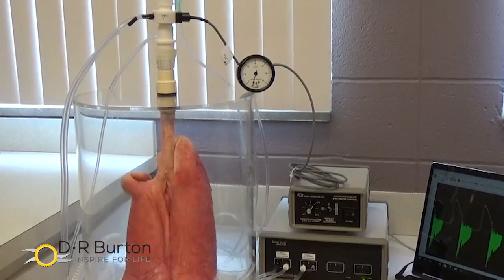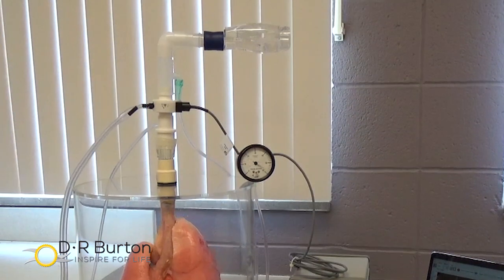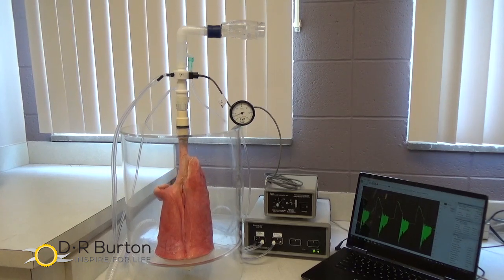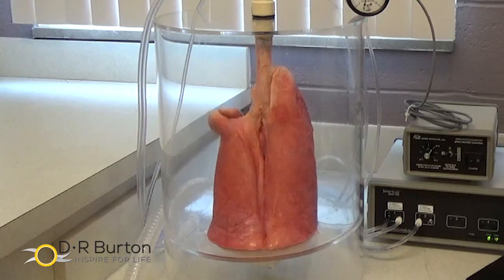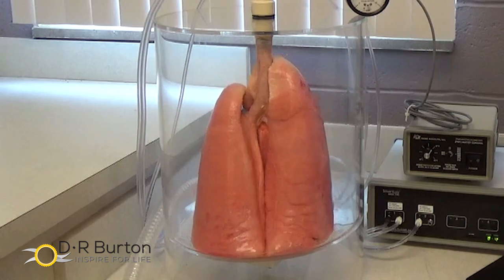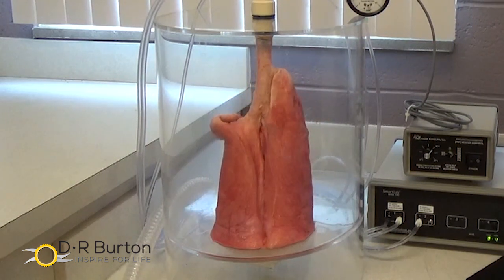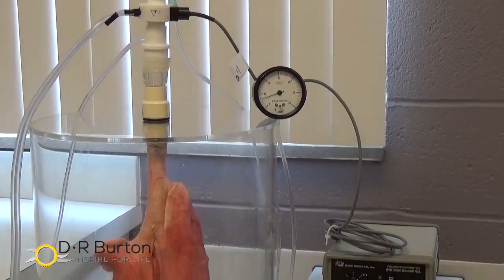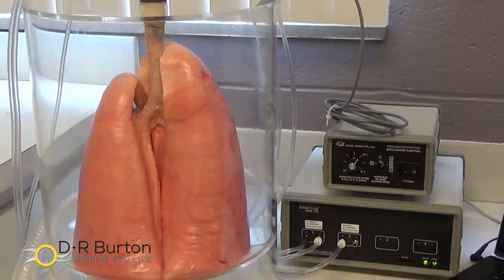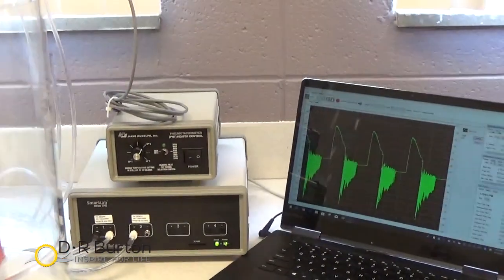We demonstrate inspiration and expiration through the VPEP using a lung box featuring a porcine lung. Note how the lungs are inflating and deflating. There is a manometer in line to measure pressures from the lung box, which is connected to a computer showing flow loops.